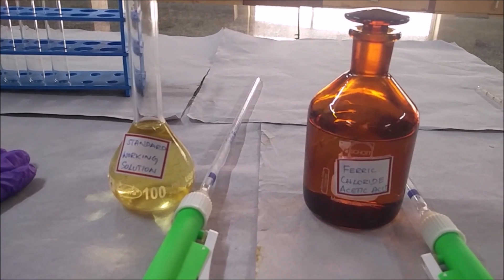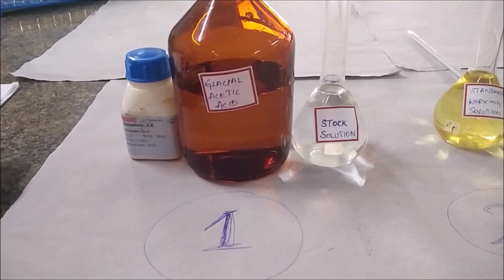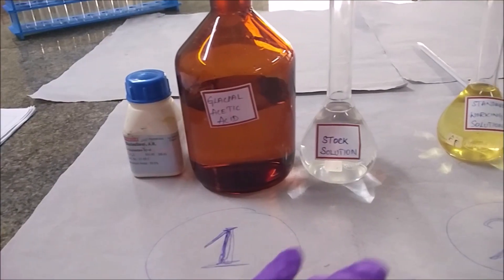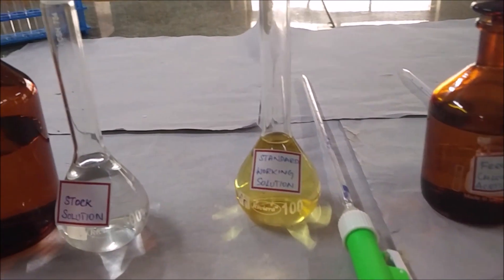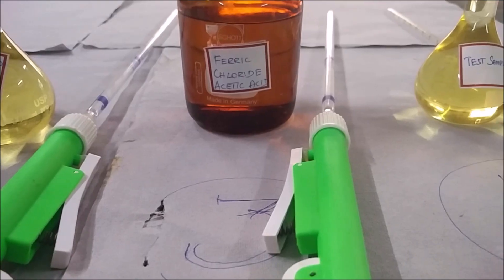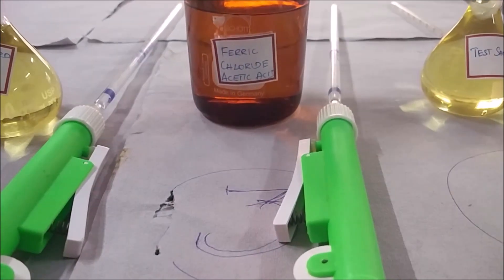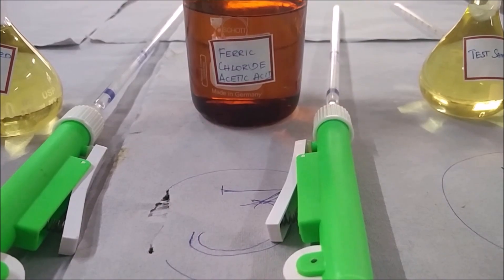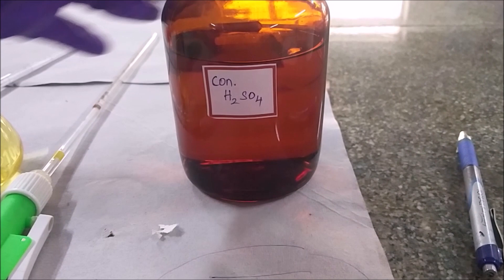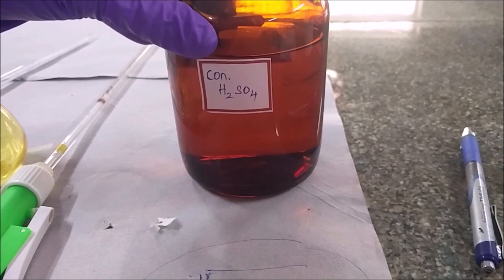The materials required are: first, the standard stock solution of cholesterol prepared in glacial acetic acid; second, the working standard solution prepared from the stock solution; third, the ferric chloride acetic acid reagent for Zack's method; fourth, the test unknown sample; and fifth, concentrated H2SO4.